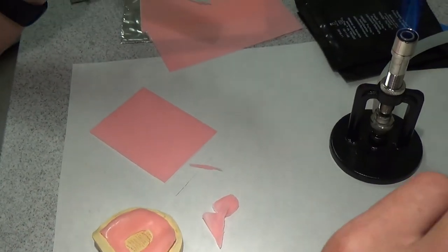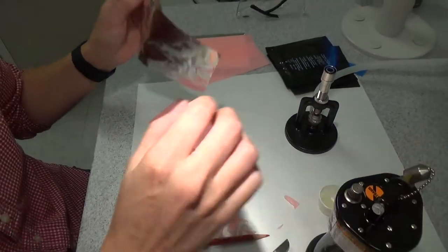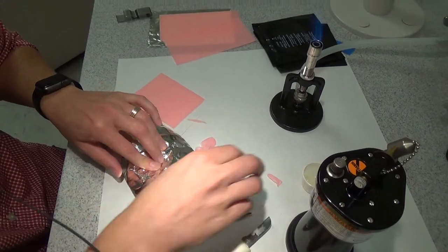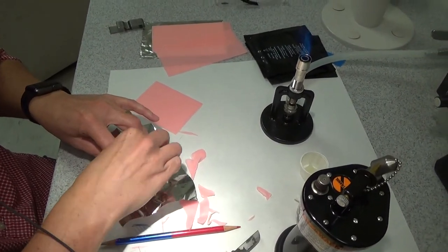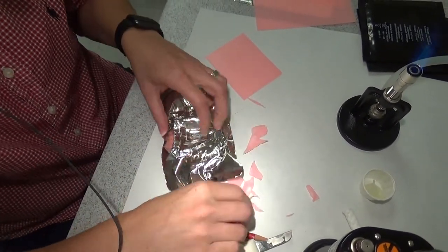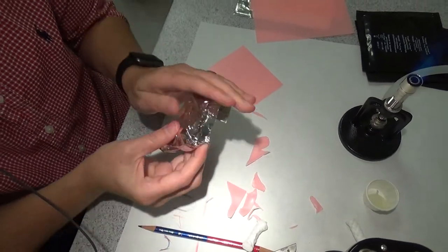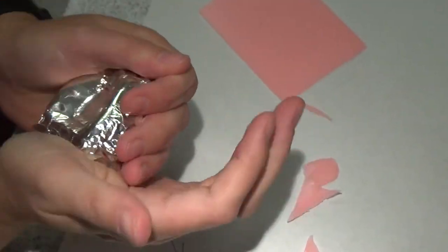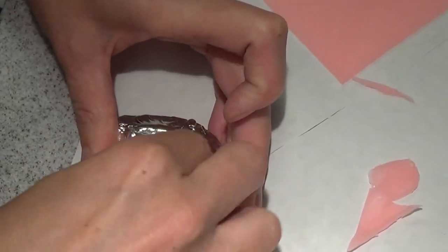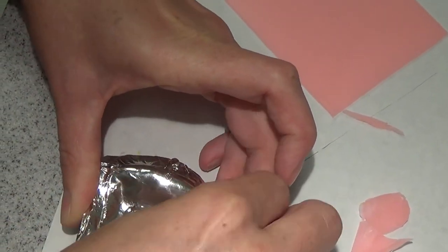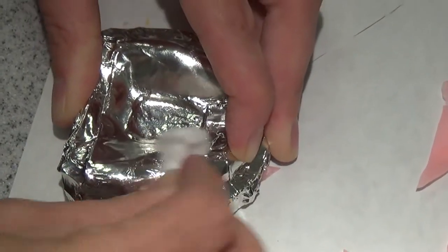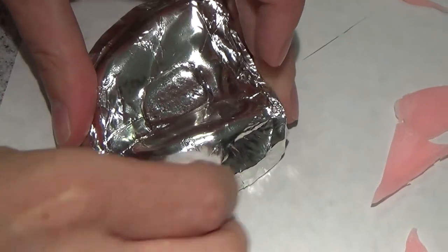Next step I'm going to do is tin foil. I want to make sure that it's well adapted. So I start in the center, get my stop. I like to use the cotton roll to do this. And then me personally, people do this differently. I like to wrap it around my cast. It just makes it more stable. Doesn't let that, keeps that wax in place for the times that it's not as sticky as I'd like it to be.